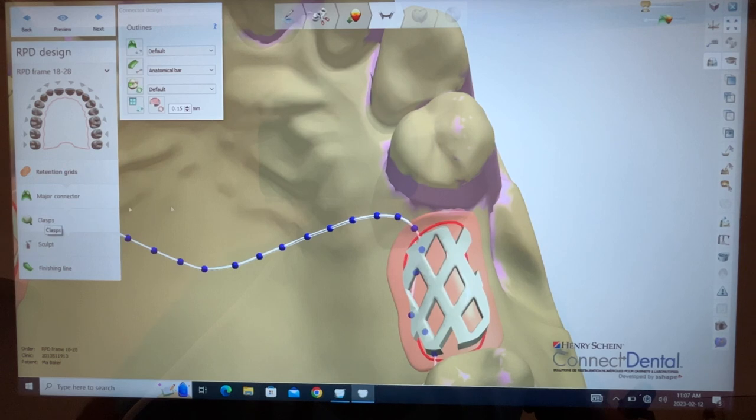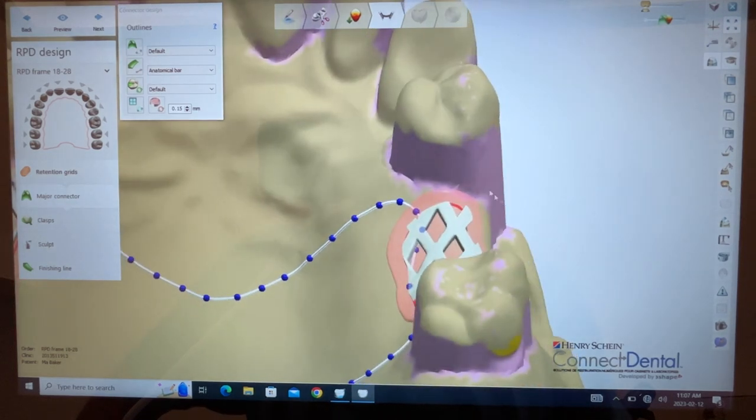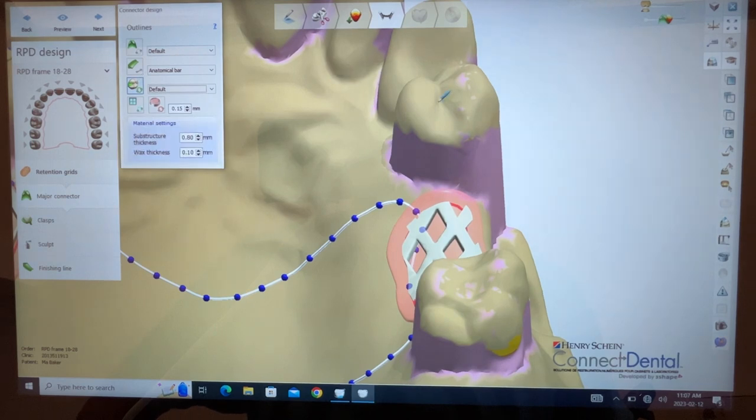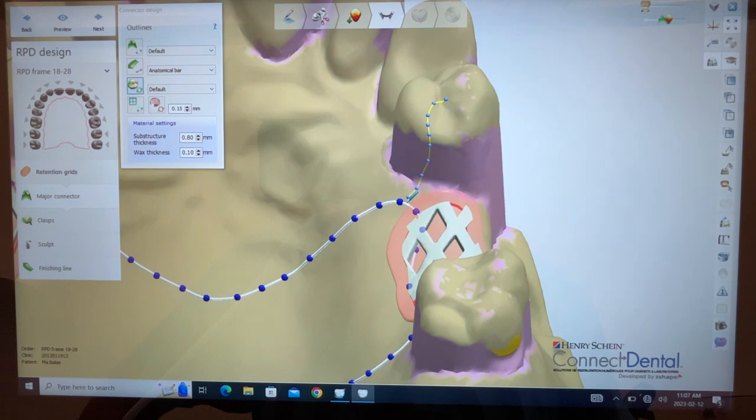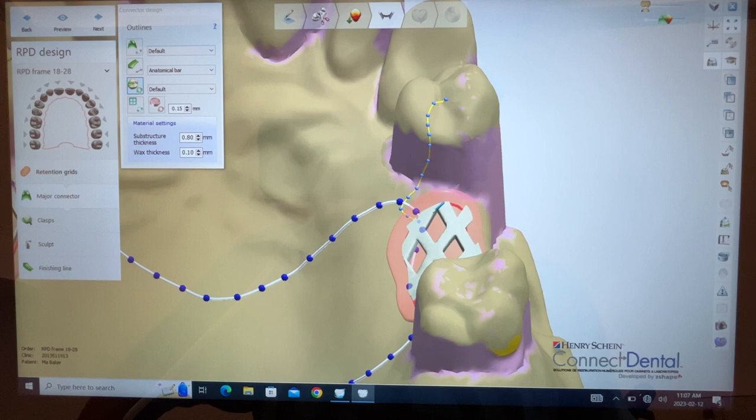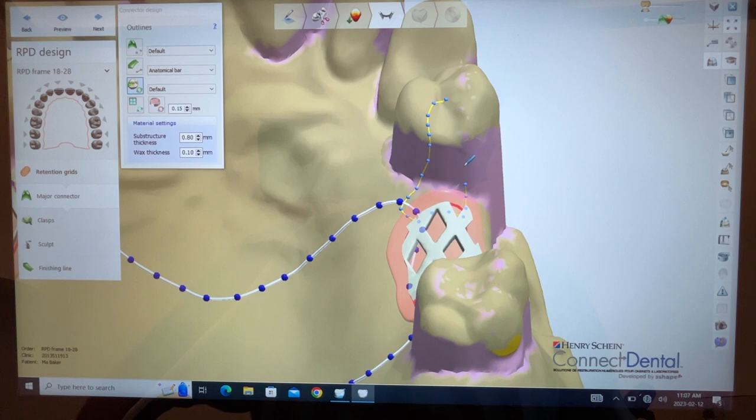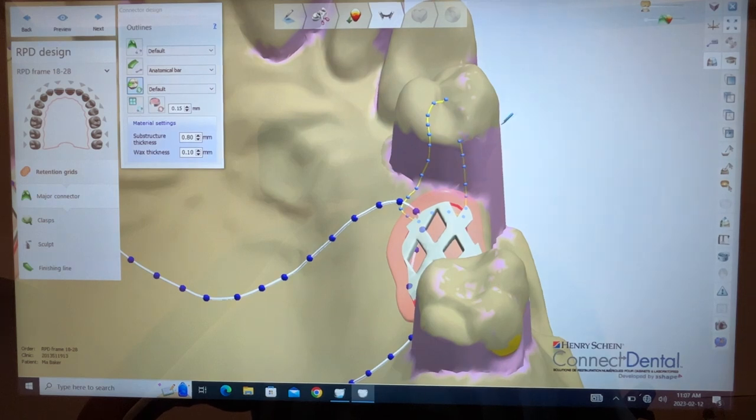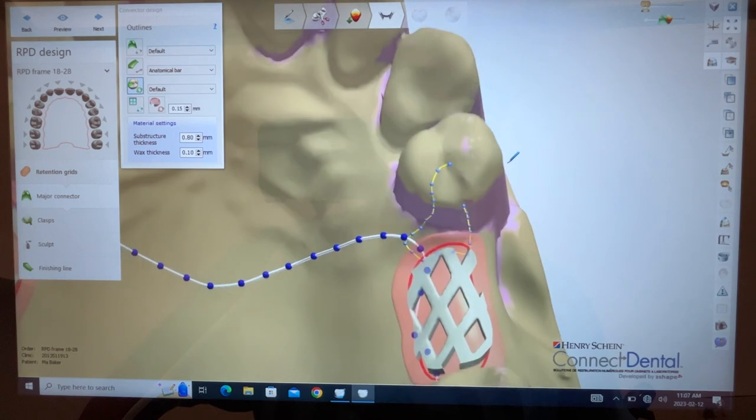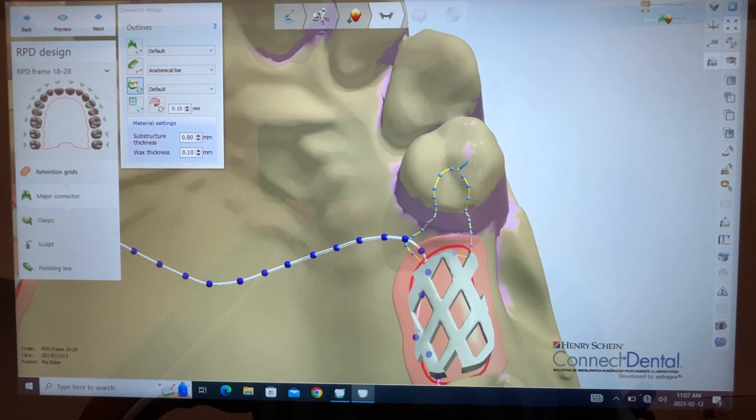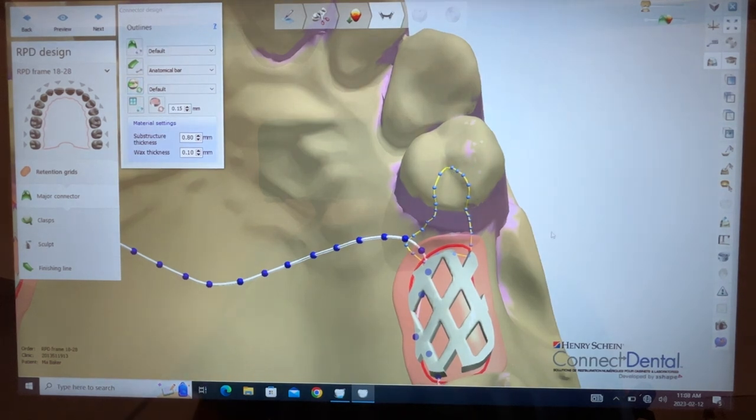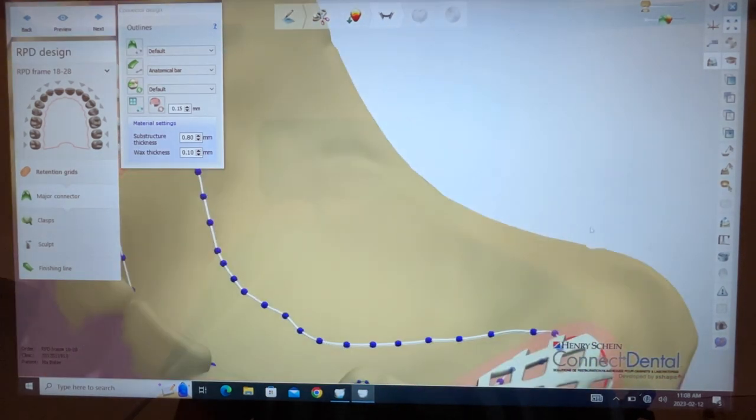So I'm going to come down here again and then I'll use this guide plane to fill this area. I'll come straight up here with the guide plane and my rest area here. I'll add one more point and close it.